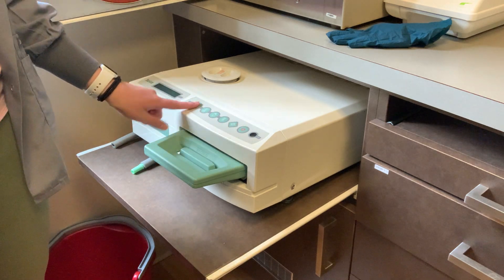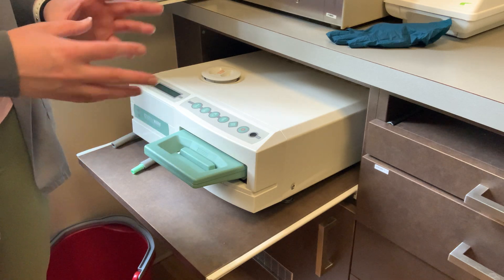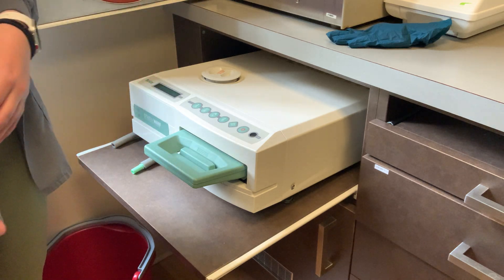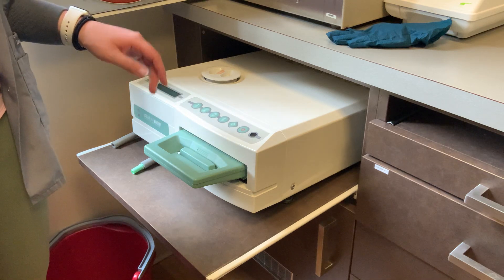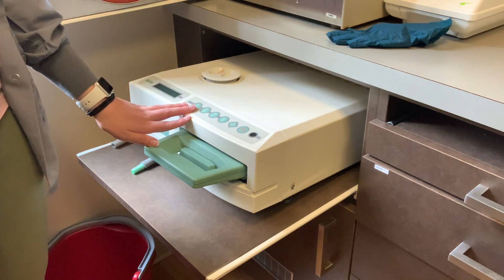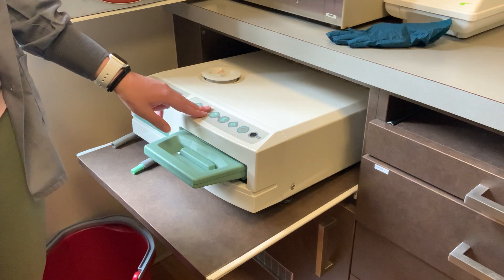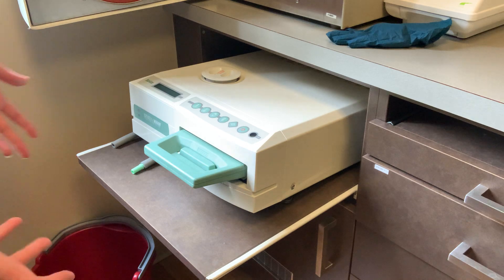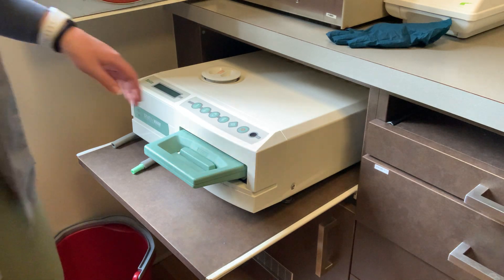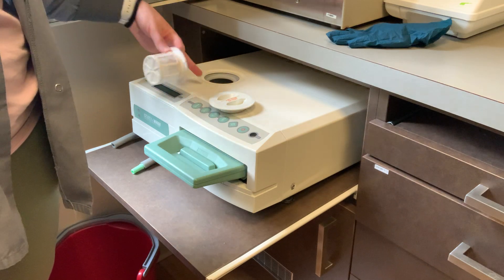Run it on unwrapped as long as it's something you're going to use right now and carry directly into surgery. If you're having a busy day and using the Statim to help catch up on autoclaving, those items will need to be in a pouch because they're going into storage in the drawers — they're not something you're using right away.